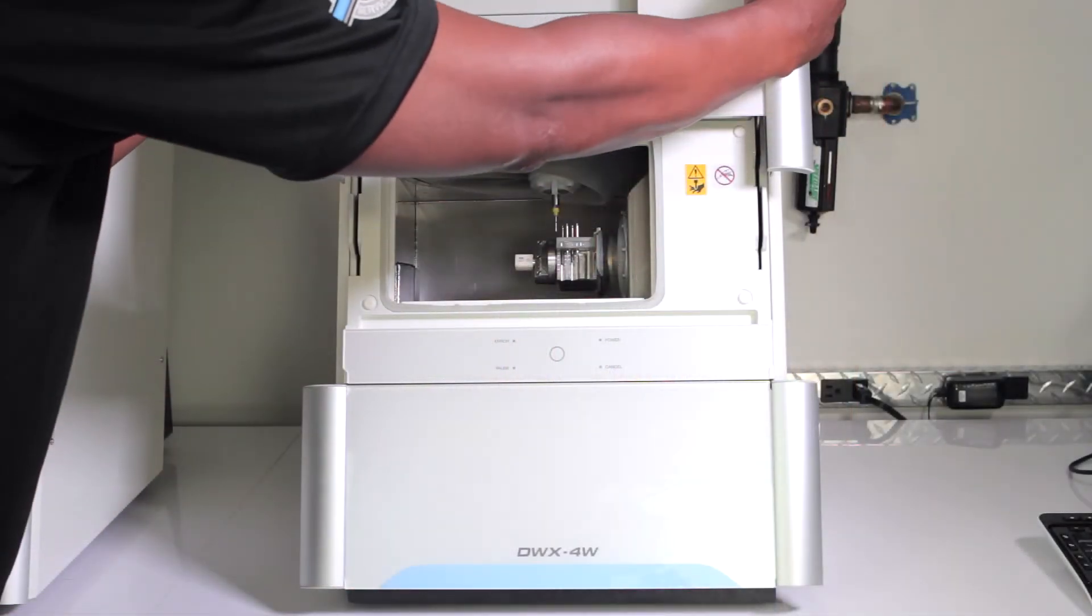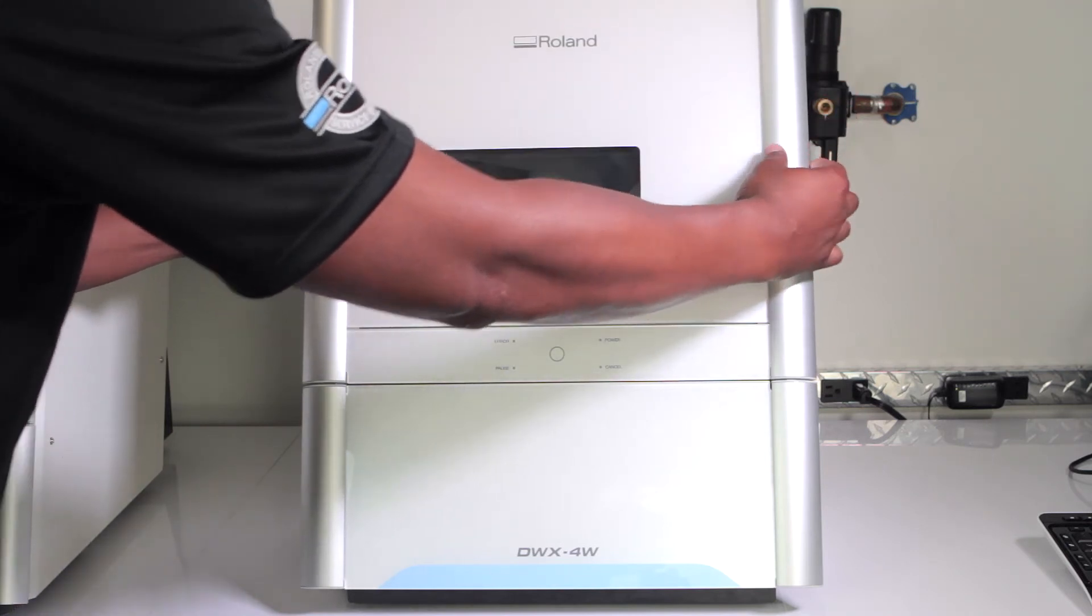Close the front cover. Your DWX-4W is now installed and ready for milling.